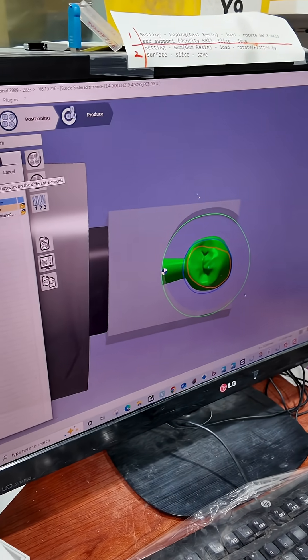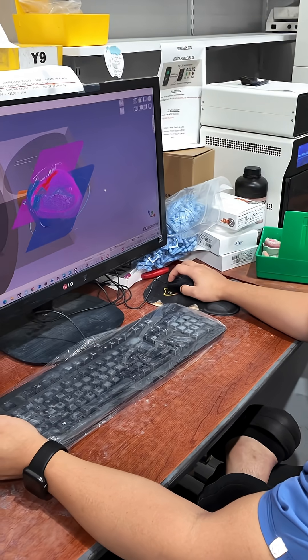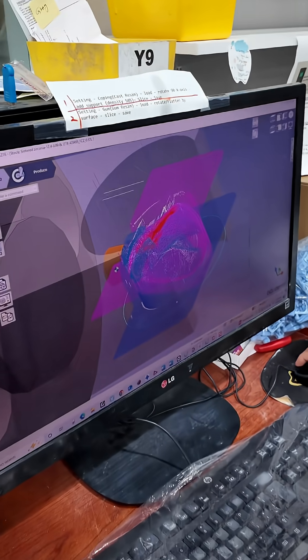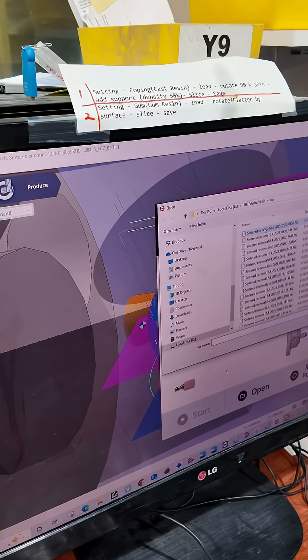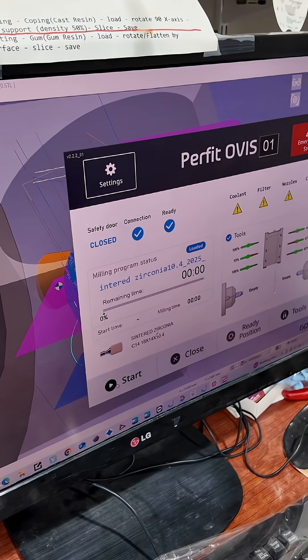Let's validate it. So once it's done validating — this kind of looks insane, but this is the machine tooling path. Then let's open up our other software, choose our file, and then we're ready to go.